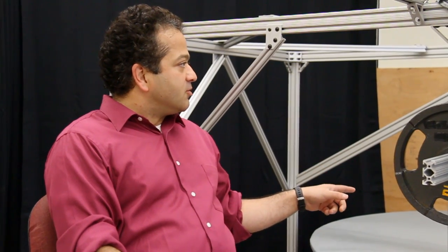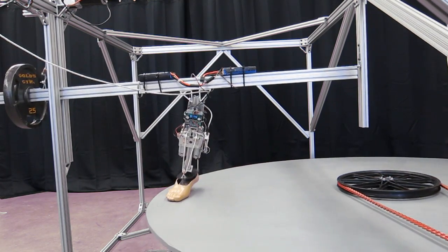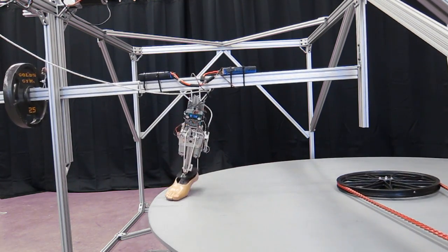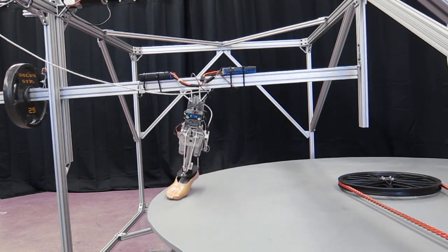In order to evaluate the performance of the robot, we are developing this circular treadmill as an evaluation platform. My research is focused on the design of powered ankle foot prosthesis.